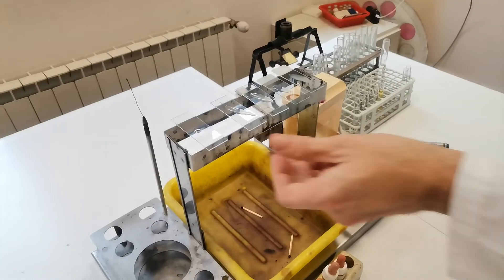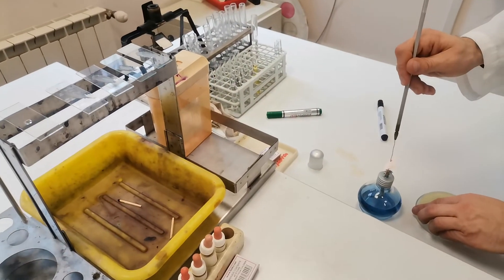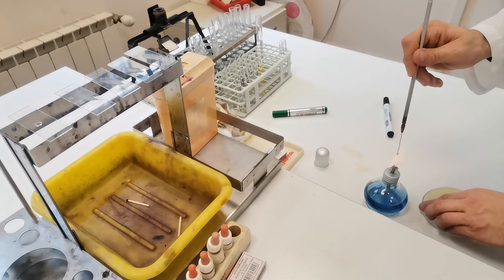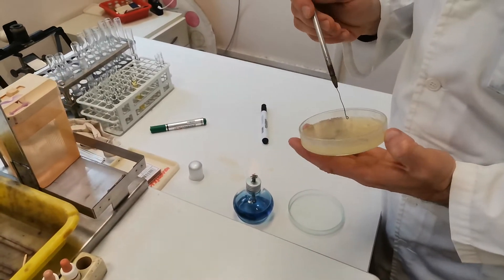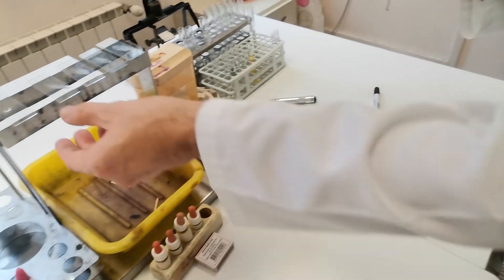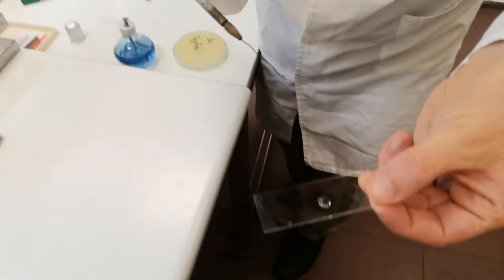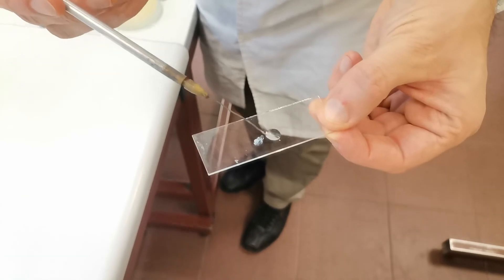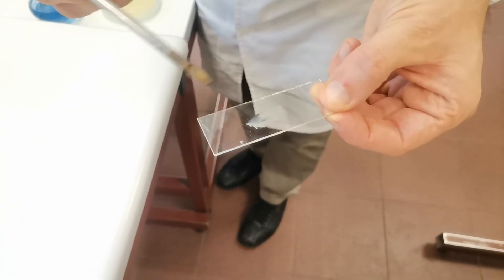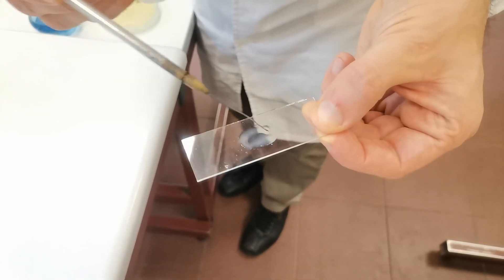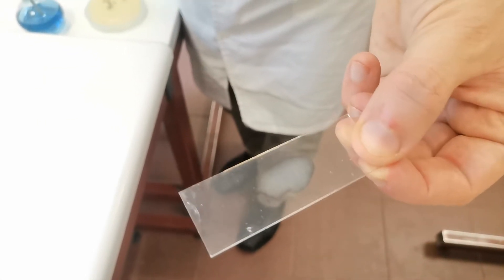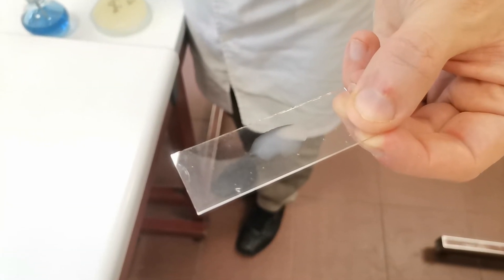This is also quite cloudy and without fine grains. And one more. The drop remains cloudy, a typical negative reaction.